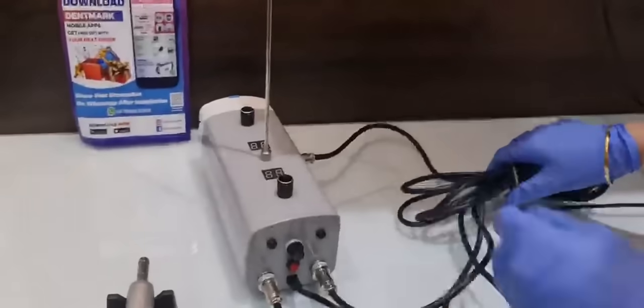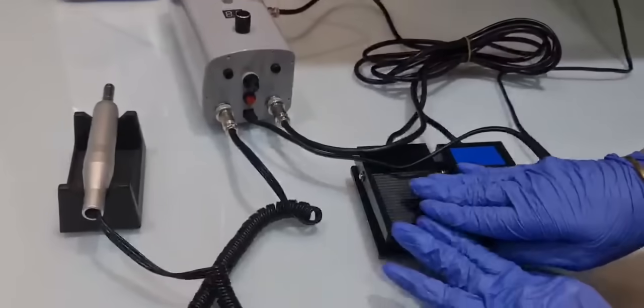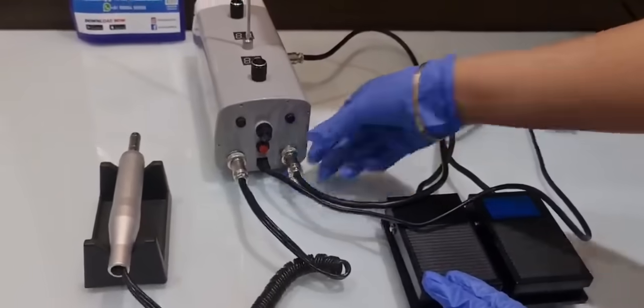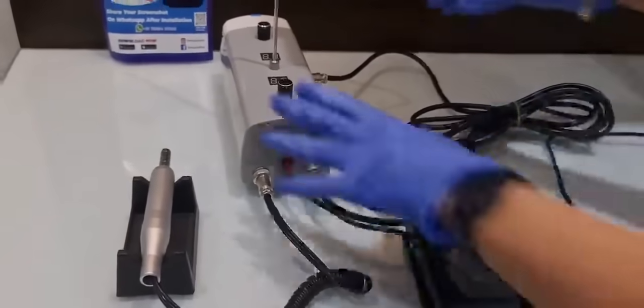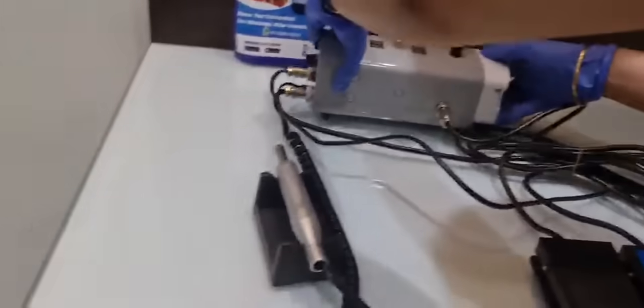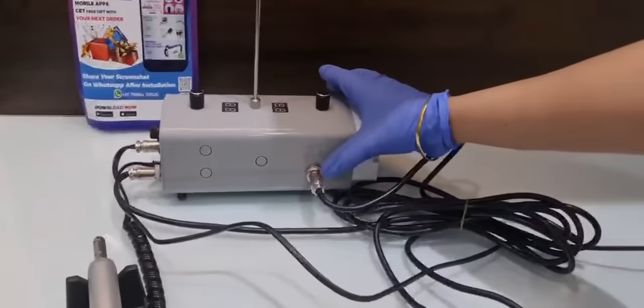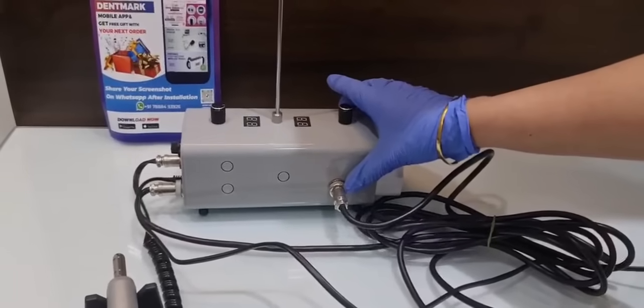The very right one is attached to the foot control. This is the foot control and the right cord is attached to the foot control. For the water there is another cord at the back.